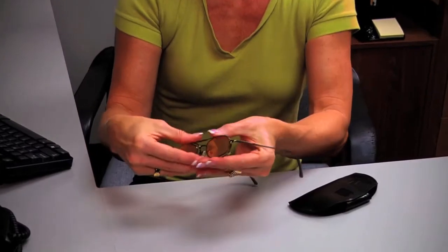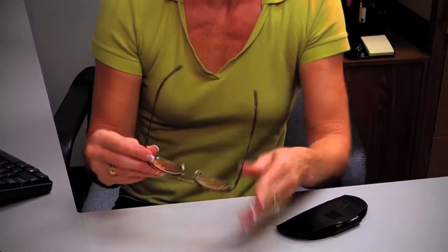The lens power is designed to provide clear focus and magnification from a normal computer viewing distance. This combination of optical power and tint provides maximal relief from computer eye strain. You always get the power right in front of you where you need it.